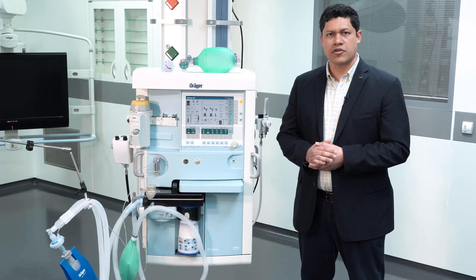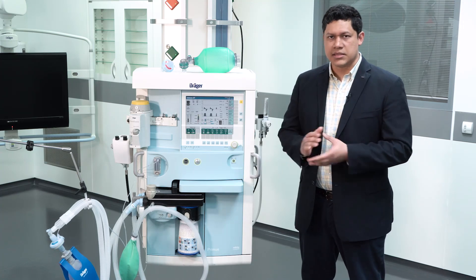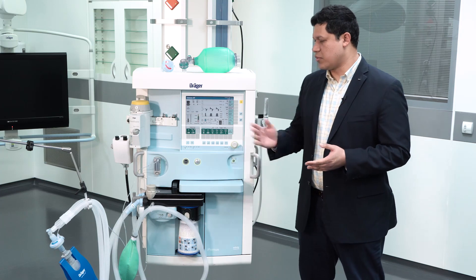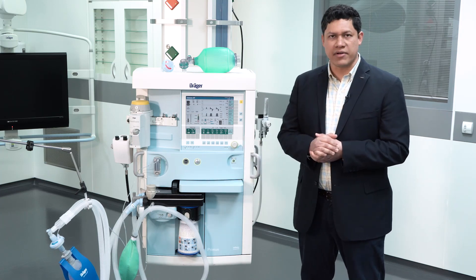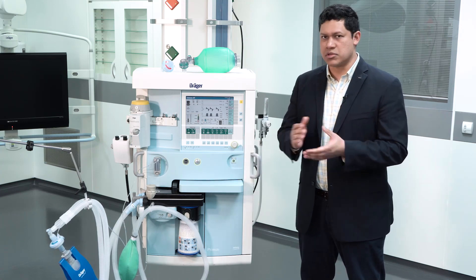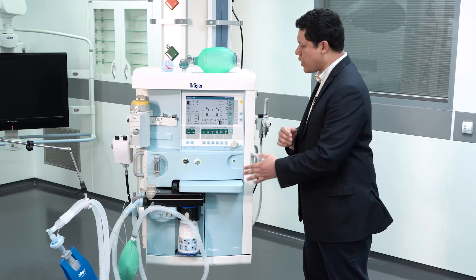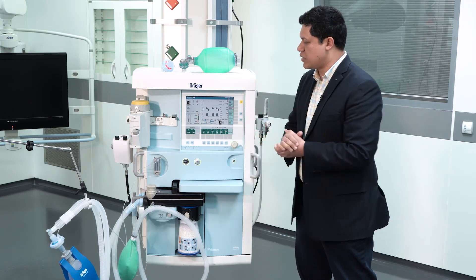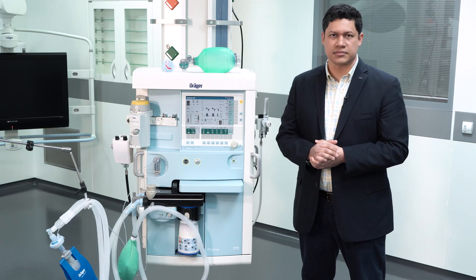Another important difference to highlight is that because of the intended use of the anesthesia device in the operating room, we do not have available a lock-in function, so there is no way to restrict the access to the configuration of the device.